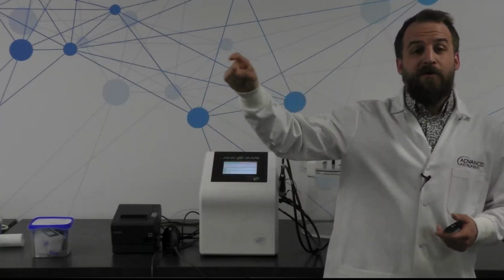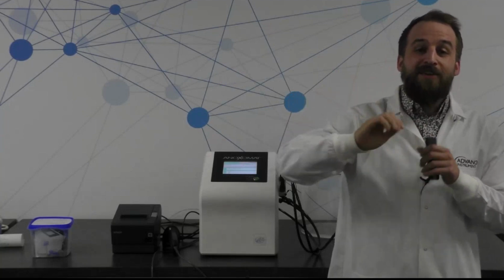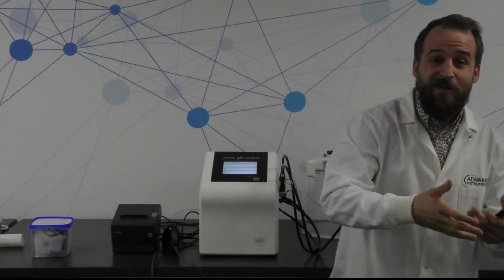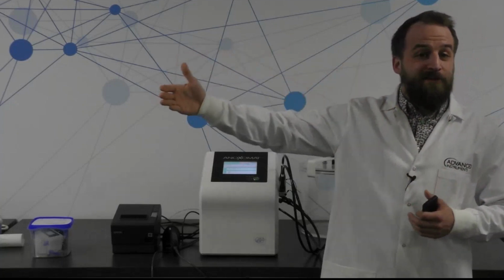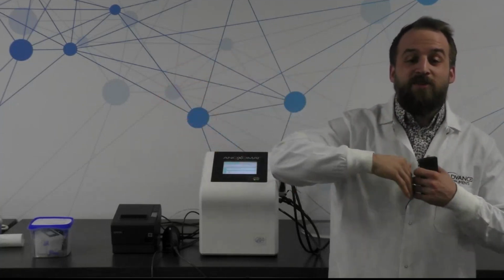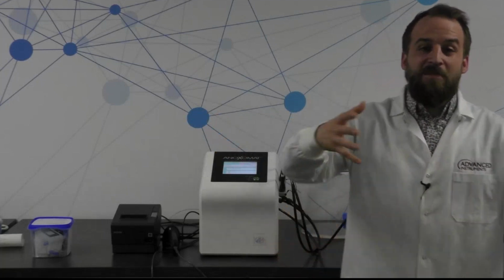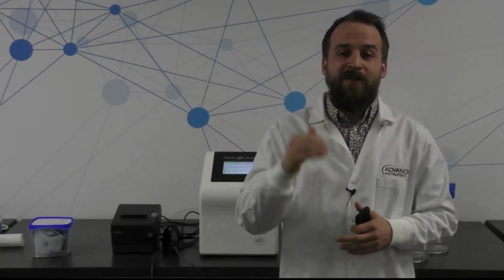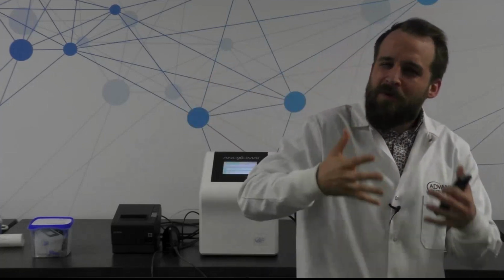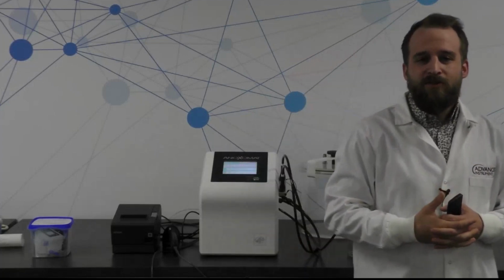So at the 48-hour mark, it's going to have a little note on your receipt, on your printout, that will say, hey, you set this culture up on April 25th at 1:30 p.m. And then it will give me a time exactly 48 hours from now as to when I should check for growth. So you can use that information to make sure you're lumping all of those anaerobic culture jars together, that you'll be checking for growth at that same 48-hour interval, or within a reasonable amount of time based on when those cultures were set up.